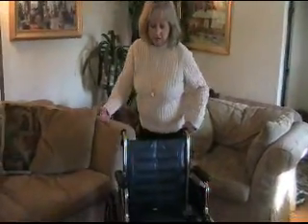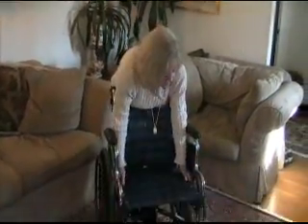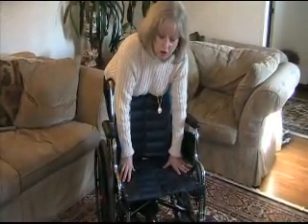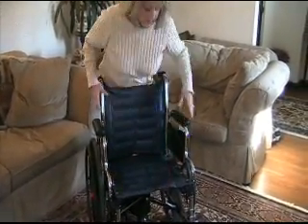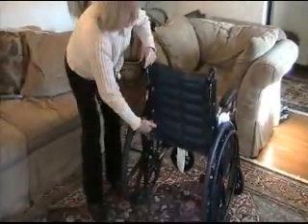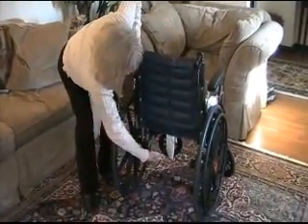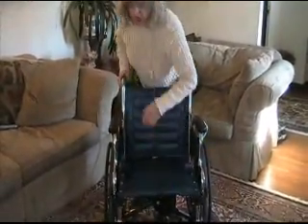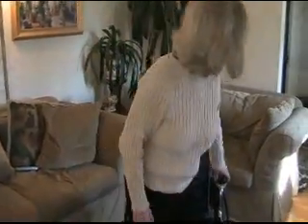Hi, I'm Teresa, and now I'm going to show you exactly how this wheelchair works. First of all, the locking system goes under the pad of any wheelchair — whatever wheelchair you may already have in your home, this will work. It's a mechanism back here, a kit that sits on any wheelchair; it comes back here and here and folds under here.